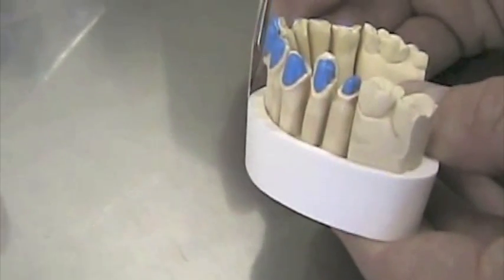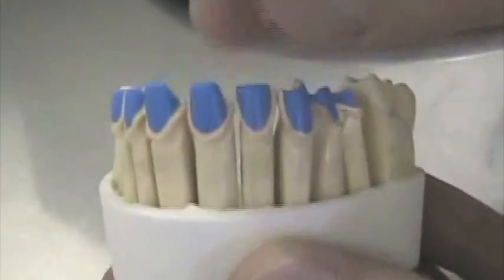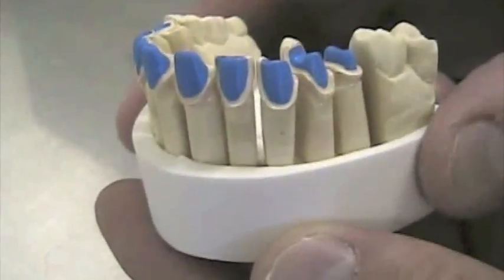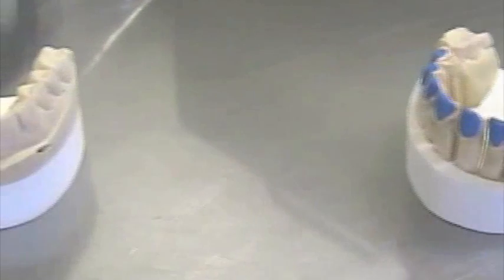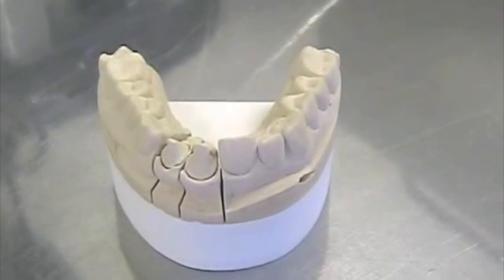Compared to that model here, we didn't cut the silicone. And you see, I had to stay three or four millimeters away from the brown base, just because we didn't cut the silicone. And now when I'm going to be working on it, I'm never sure to have those parts back in place. Really never certain. So this detail, I think, is important. It is maybe the responsibility of the dentist or the technician to do the cutting of the silicone. I would not suggest for the assistant to do it.